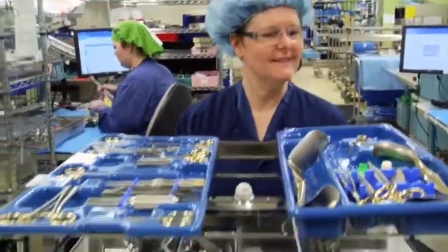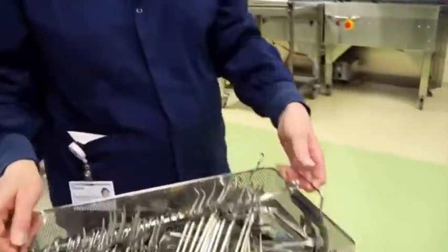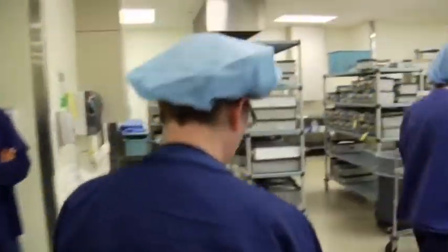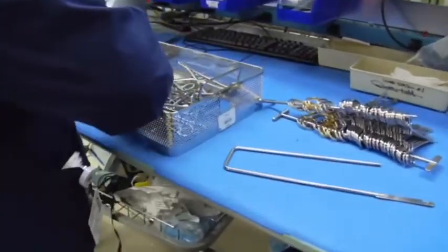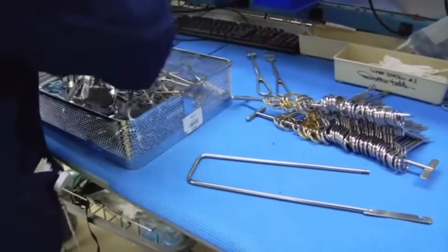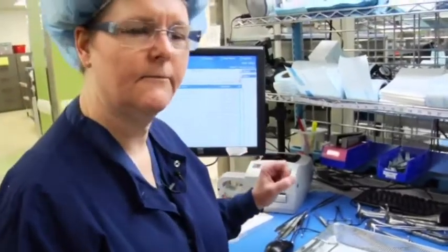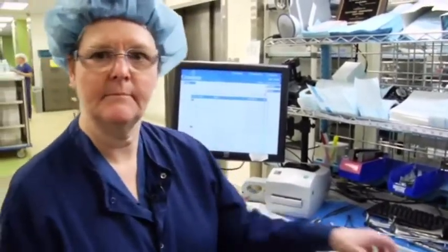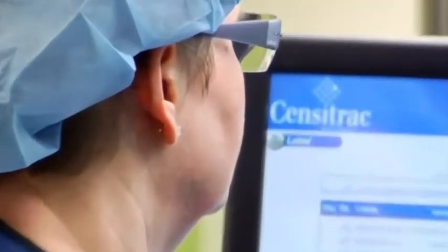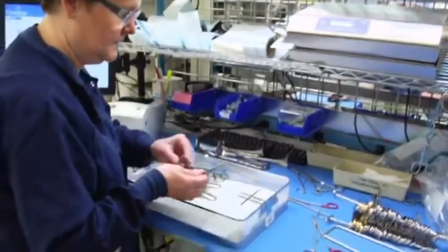It's hot today. I'm scheduled to put up instruments. The instruments come out of the washer, the technician upstairs puts his instrument count and puts everything back into the tray. Once it comes through the washer, I'll bring it over here, reassemble the instruments to go back into the tray, and then into the pans to be sterilized. This is the count sheet for the particular pan — I'm matching the count sheet and putting the instruments into the pan. When I'm finished, I'll click off my count sheet in the computer, print a sheet, and these will go into the pan to be sterilized and sent upstairs to surgery.